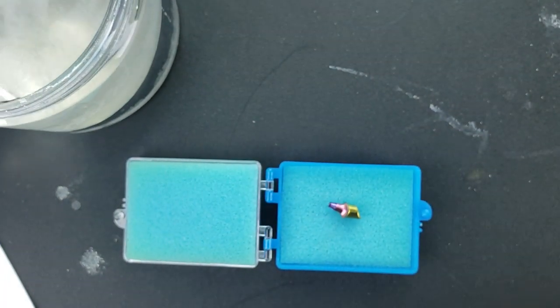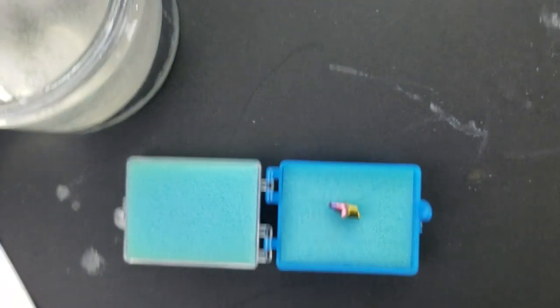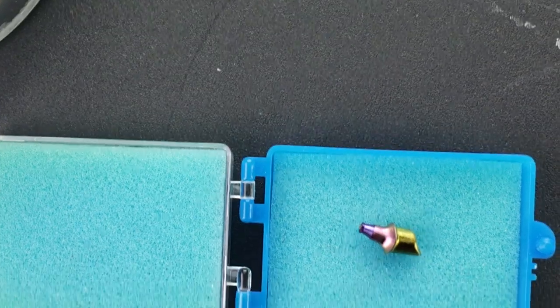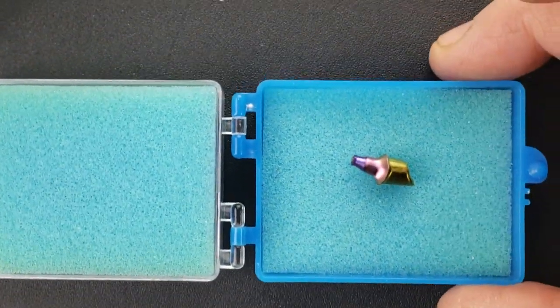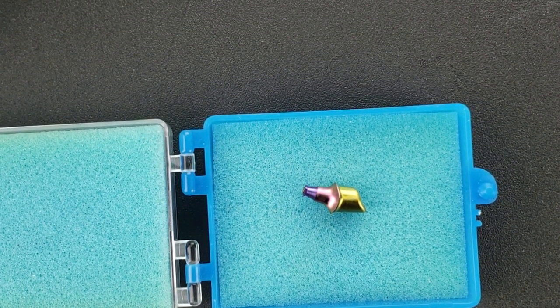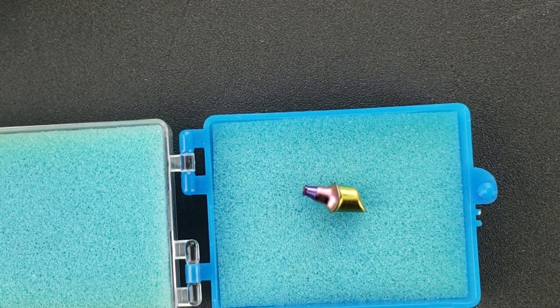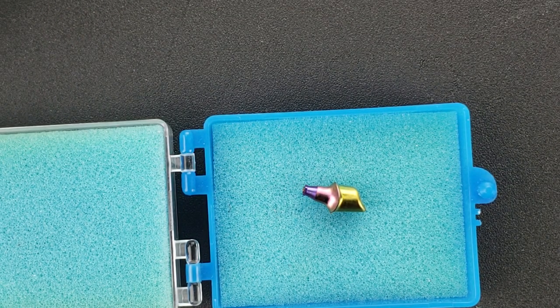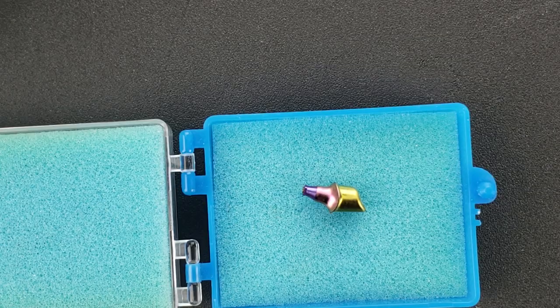Really, really affordable thing to do, and I find this to be super useful. There's a zoomed-in view of it. I think these titanium anodizers are a couple hundred bucks, and the solution is just a couple of dollars to maintain, so it's a really inexpensive thing to do. Hopefully you found that useful.